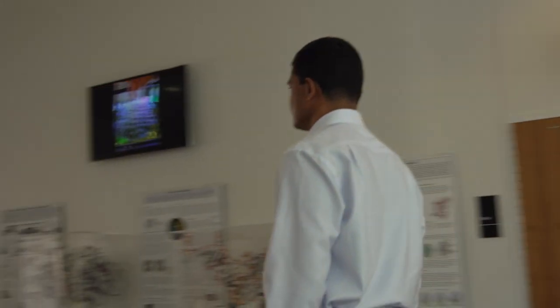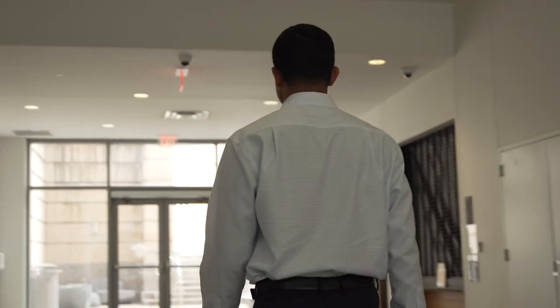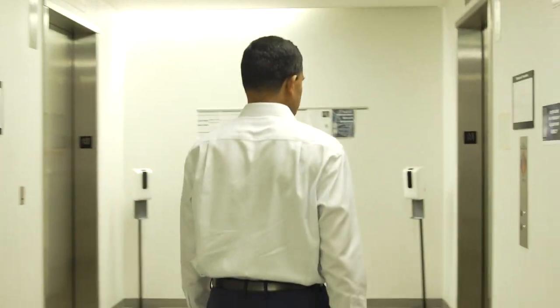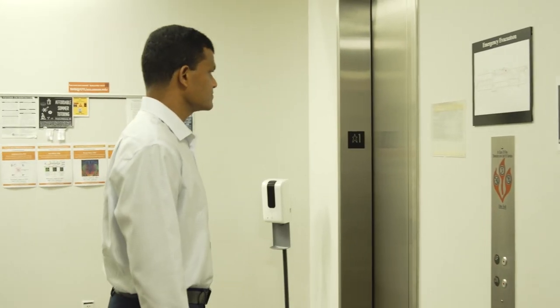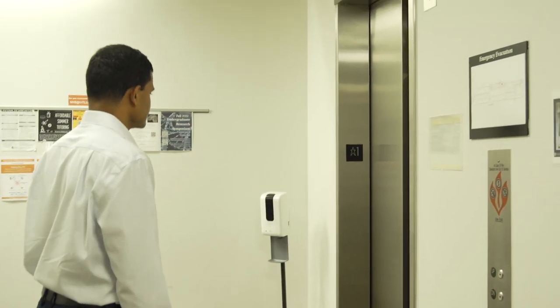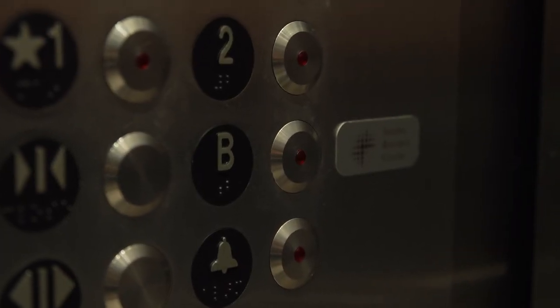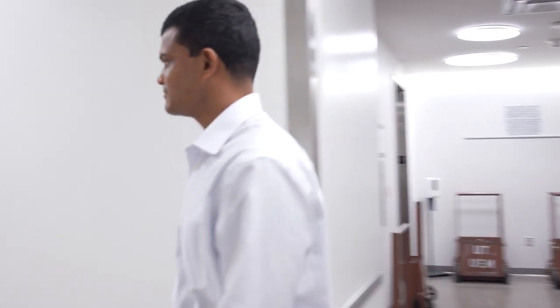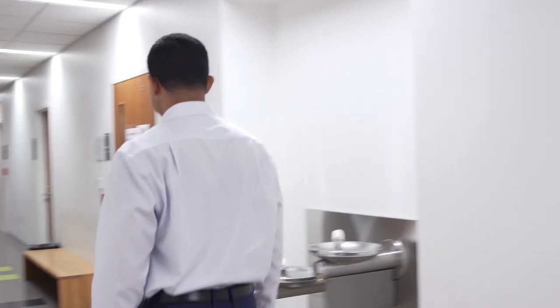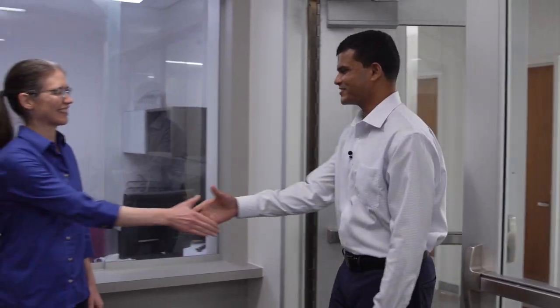The Biomedical Imaging Center is in the basement of the Norman Hackman building. Inside they have a magnetic resonance imaging machine. The MRI machine is one of the best examples connecting physics directly to the life sciences. We'll learn what an MRI machine is and what physics are involved to make it work.